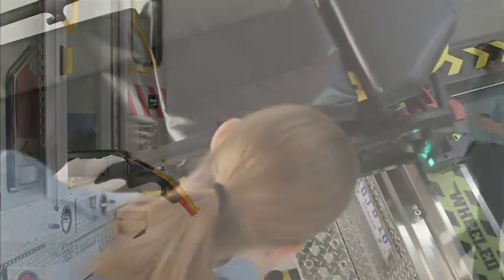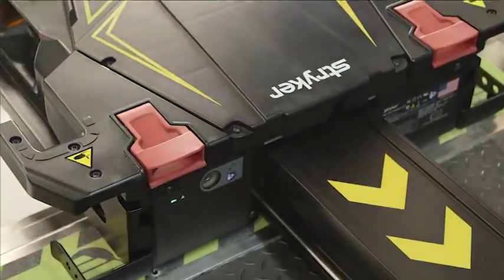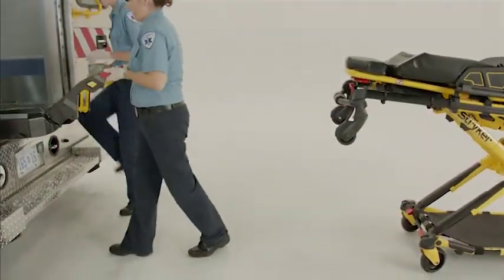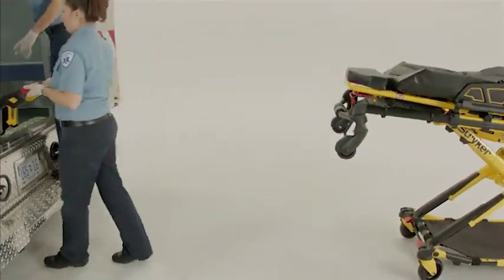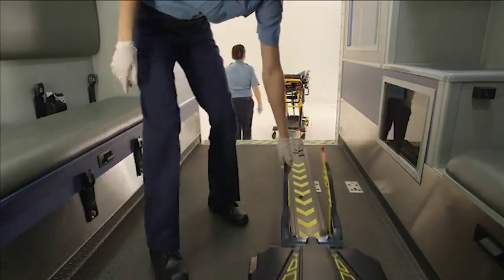Or, the side operator can disengage one of the red manual cot release handles on the top of the trolley as both operators guide the cot out. To secure the ambulance, raise the lifting arms and guide the trolley into the patient compartment until it no longer interferes with the ambulance doors.